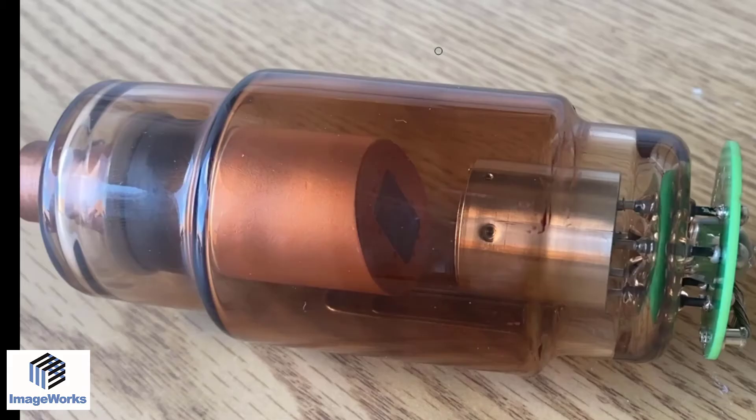The design of the x-ray source is pretty straightforward. You have a cathode on one side and an anode on the other side. This design applies to any x-ray modality, whether it be a handheld, intraoral, wall-mounted, extraoral, panoramic, or cone beam system.